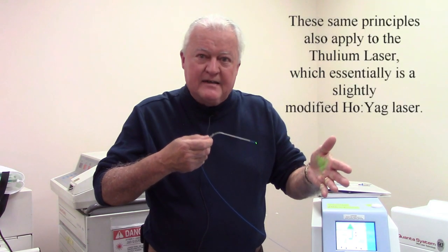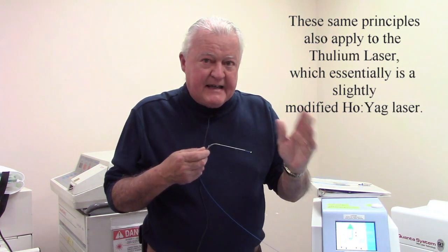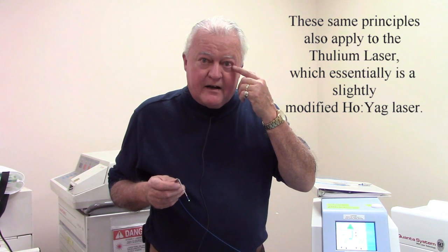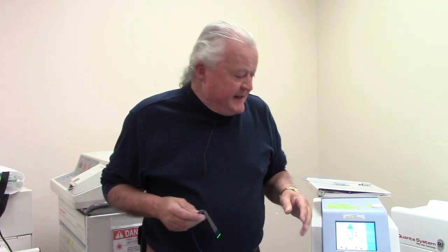I'm actually going to shoot my hand with the laser and explain what I'm feeling — it's just a little bit of warmth, even at this distance away. The key here is that the maximum permissible exposure level, the MPE, of the cornea of your eye — the front part of your eye — is exactly the same as it is for skin. What does that mean? If you shoot the laser at a certain distance at your hand and it doesn't burn it, you would not burn your eye shooting at that distance either. These Holmium lasers are roughly around 2100 nanometers, which means it's outside the range that can get into your eye — it's got to be between 400 and 1400 nanometers. Past that, it will not go back into your eye so that your focusing lens can't focus it on your retina. So those are the basic safety principles. Let's take a look and see how that works.